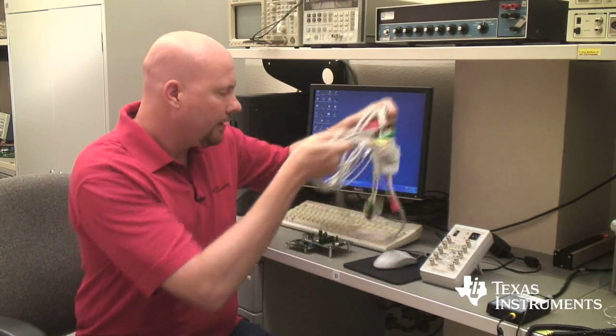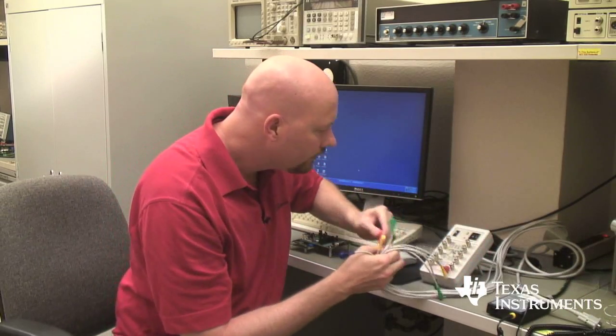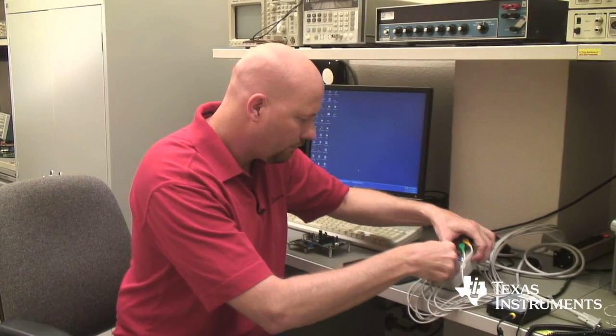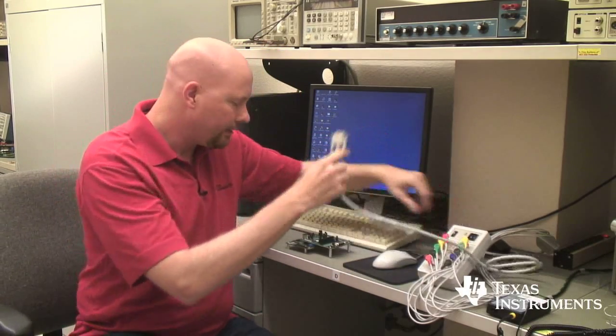So you can take this cable and snap them into the simulator and I'll do that now, and then connect the other end into the board.